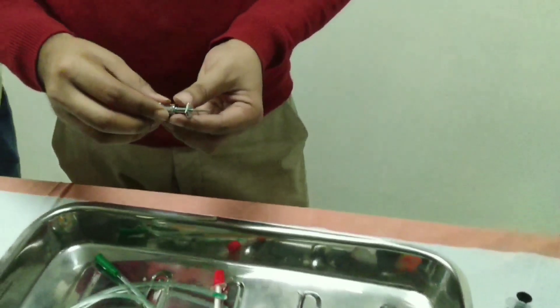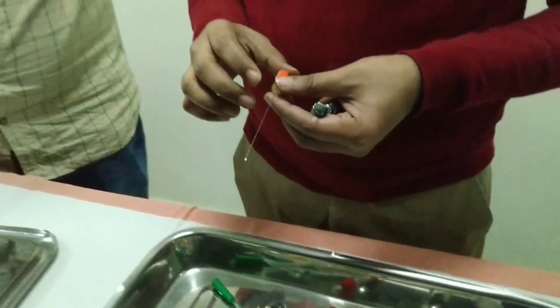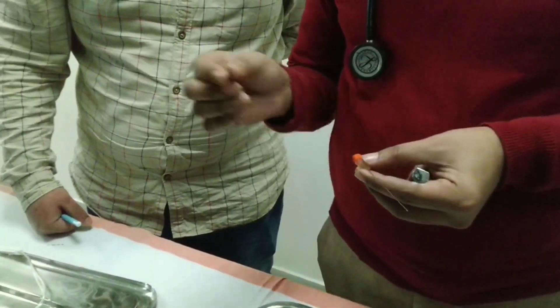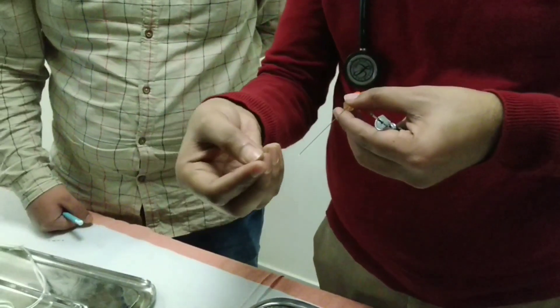What is the function of the needle proper and the stylet? What is the function of the stylet? When we put the needle in the middle, the needle enters a space. We go through the tissue and the tissue will enter and block it.